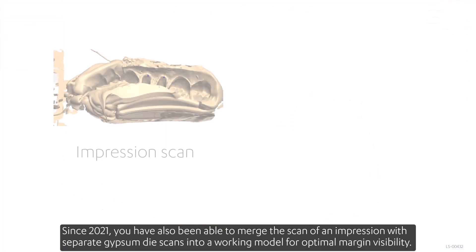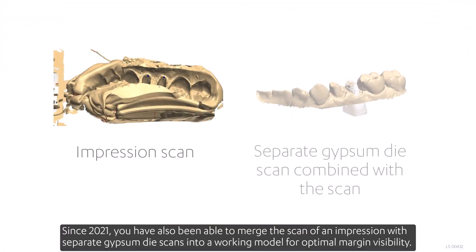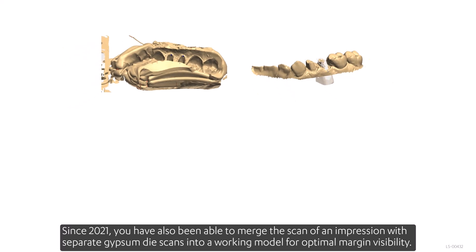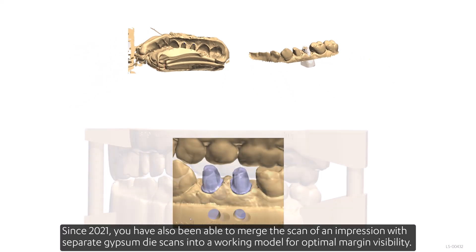Since 2021, you've also been able to merge the scan of an impression with separate gypsum die scans into a working model for optimal margin visibility.